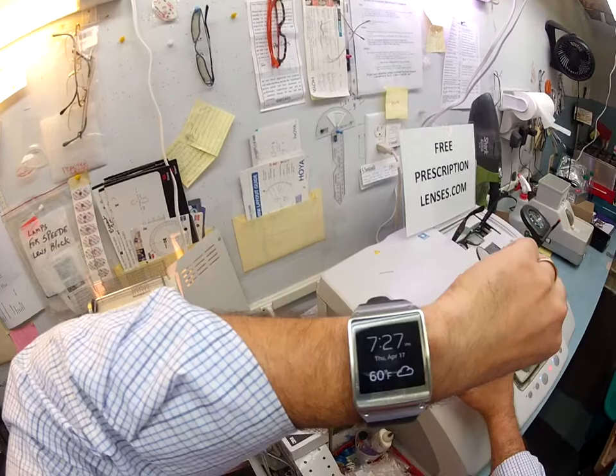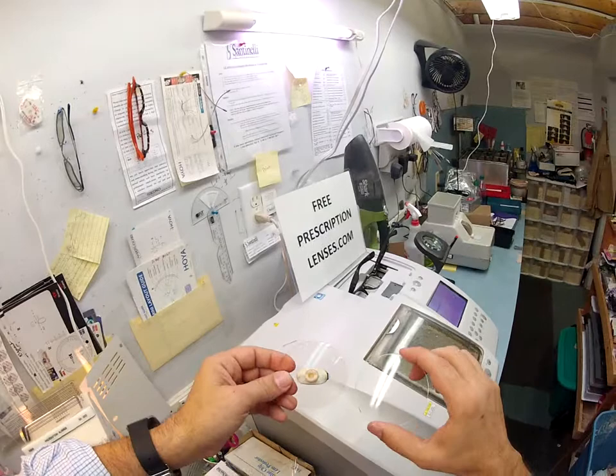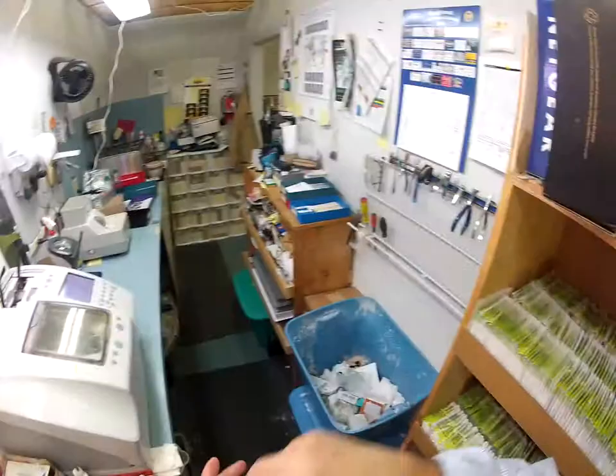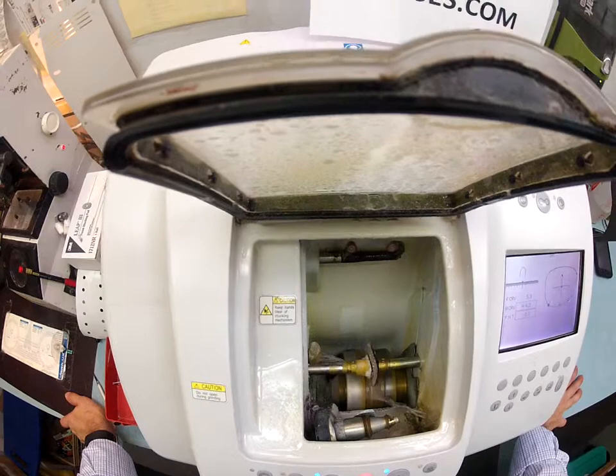You caught me yesterday after working 17 hours. It is now 7:27 on April 17th, 60 degrees in my hometown of Durham, North Carolina, at least according to my Samsung Gear watch. But this anti-glare is three features in one: it's an anti-glare coating, it's an anti-reflection lens so when someone's looking at you they won't see the reflection in your glasses, or if someone takes a picture with a flash you won't see the flash lit up. And of course the third feature — the practical side — is that it comes with the best scratch coating in the business to prevent the best coating from getting scratched.